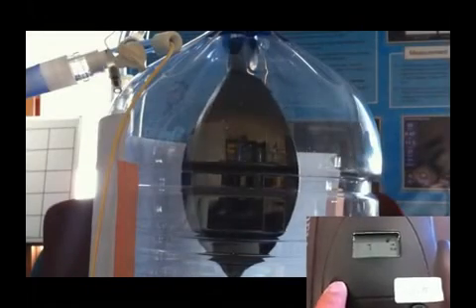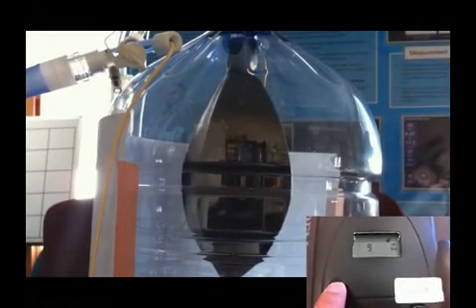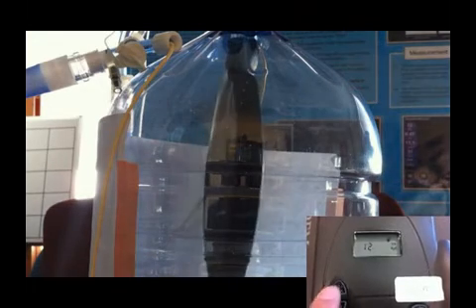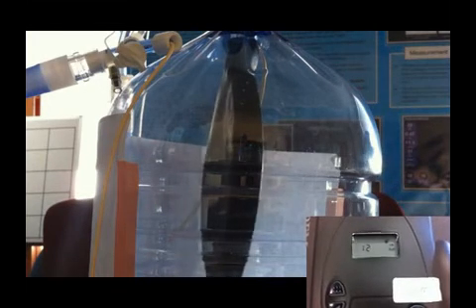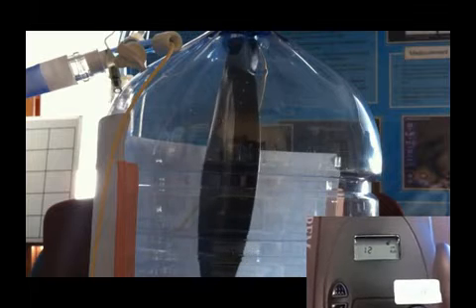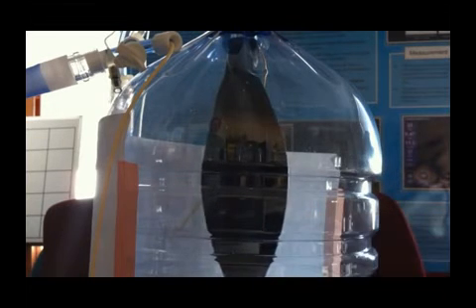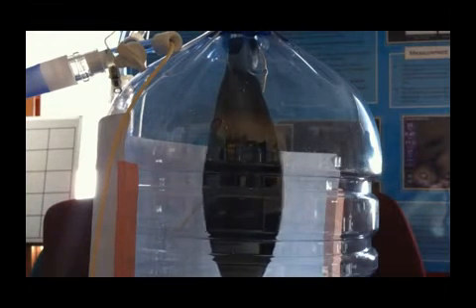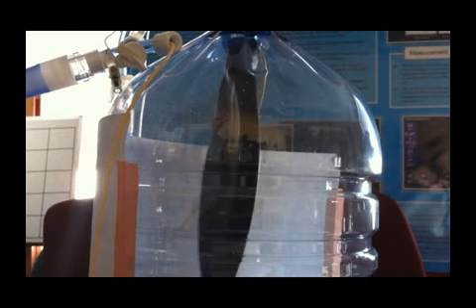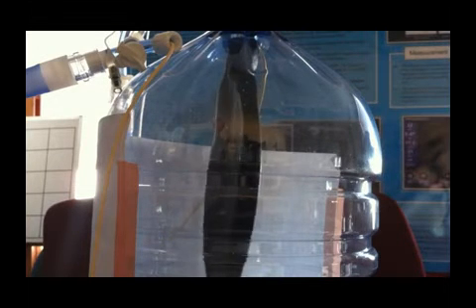If I elevate the pleural pressures to 12, watch what happens to the lung during exhalation. Now my transpulmonary pressure is negative 6 cm of water, because the pressure inside my lung remains at 6 cm of water of PEEP and the pressure outside is 12.